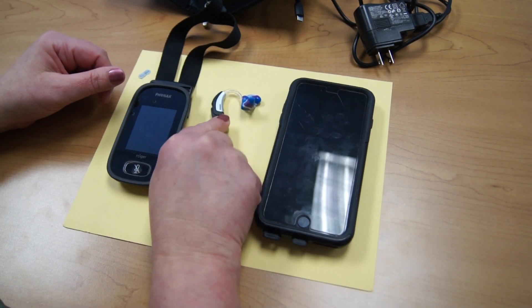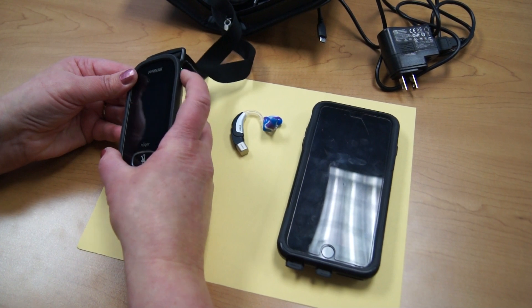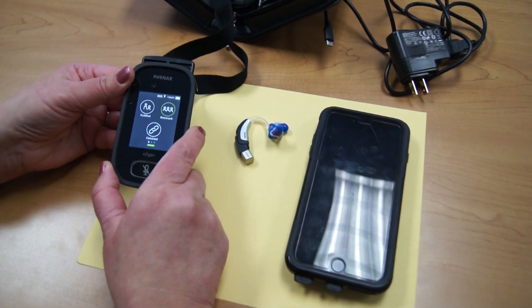Now we need to connect the receiver to the transmitter. If your screen goes black, you can hit the button on the side to turn it back on.